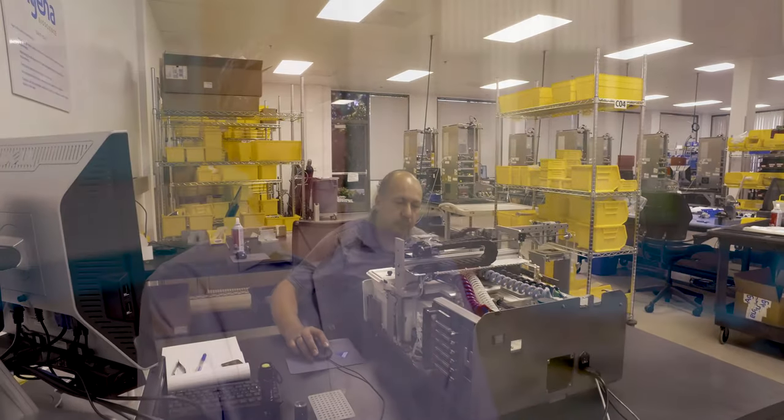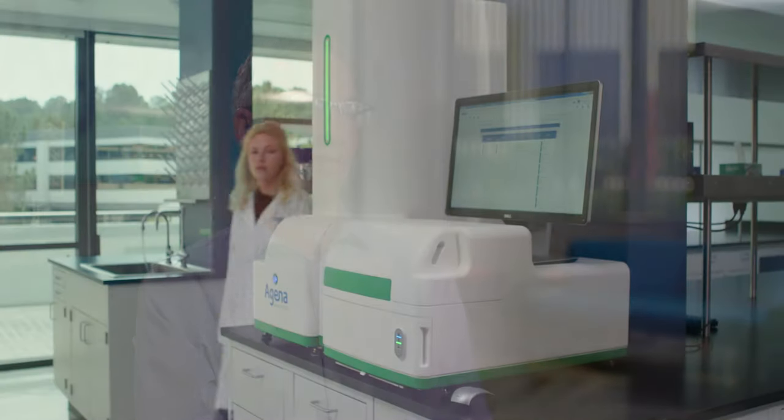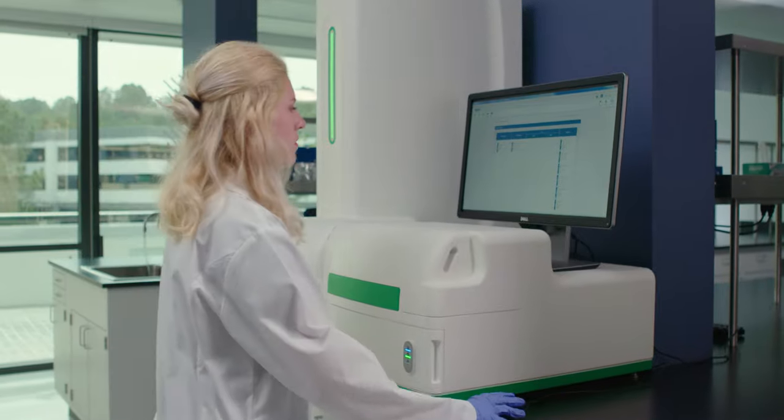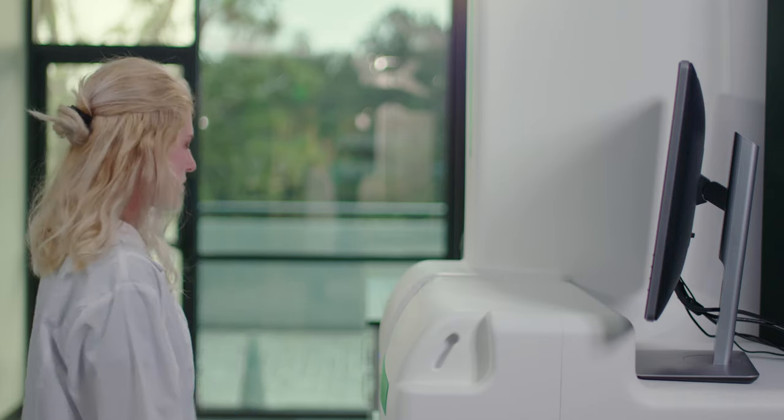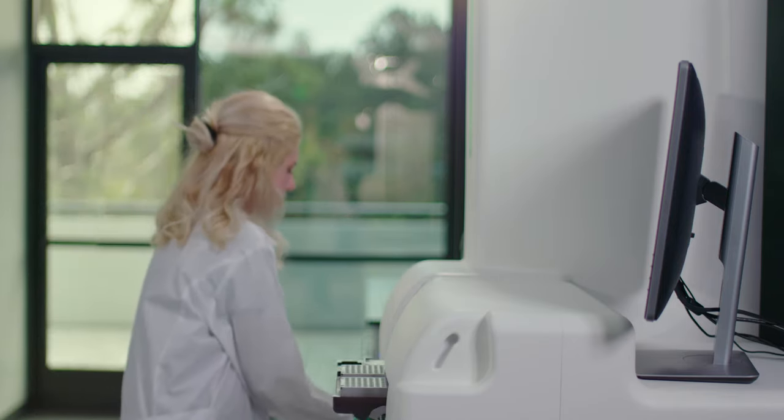I'm very proud of Agena and our mass array system because we allow clinical laboratories to really make a difference in the lives of patients. Our mission is to improve patients' lives and impact the world of clinical medicine. I feel like every day we make a difference through our customers with our technology.